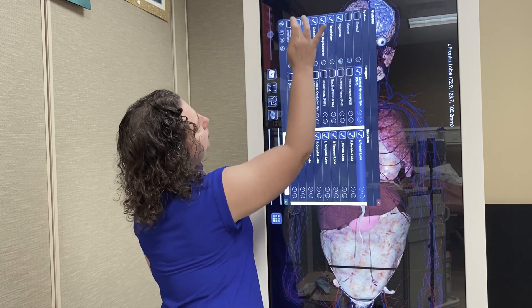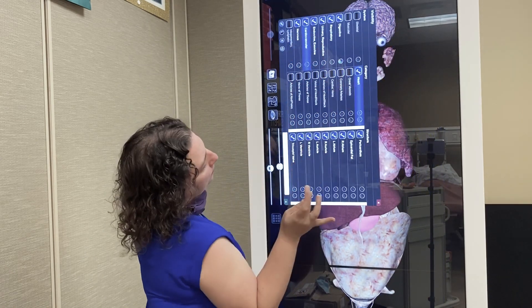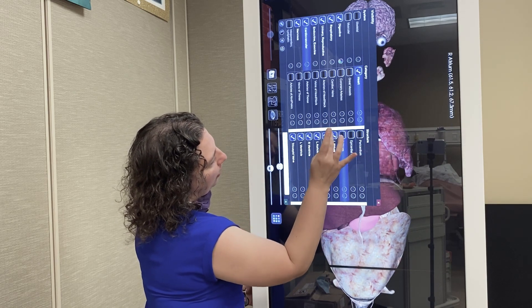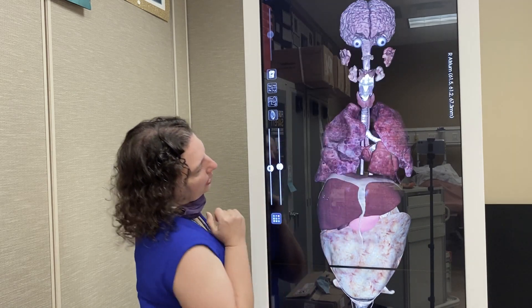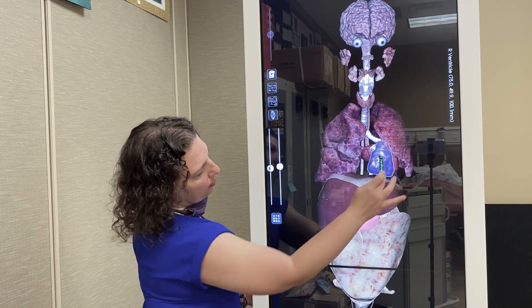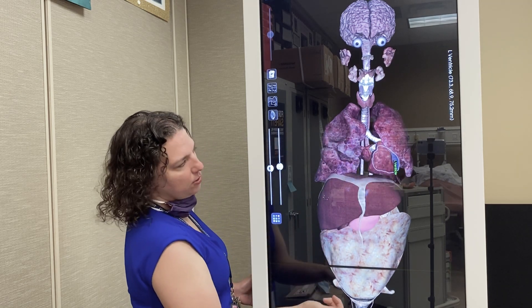I can remove the cardiovascular system but leave the heart, removing the pericardium and epicardium, where you can now see where the heart is located — right ventricle forward, left ventricle back.